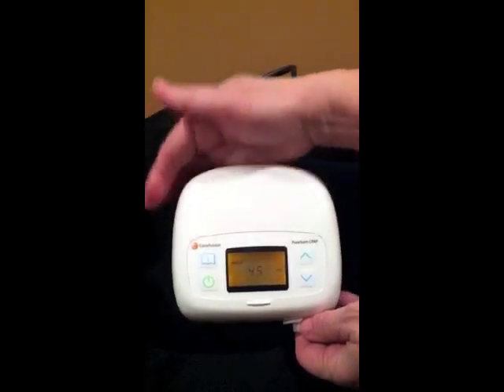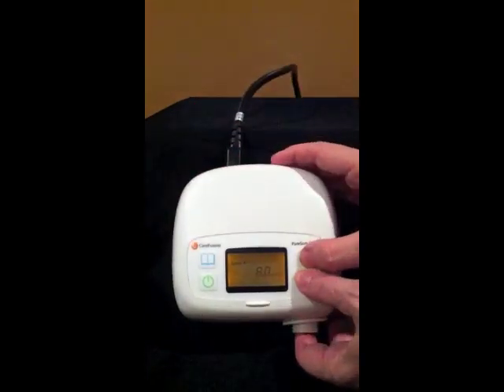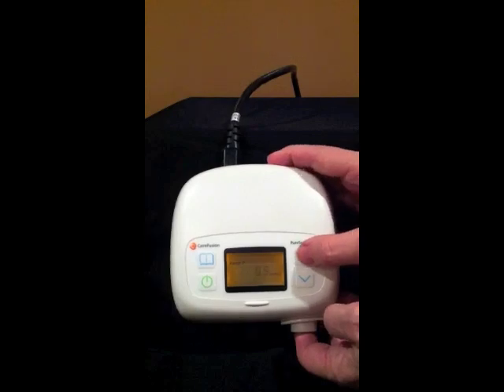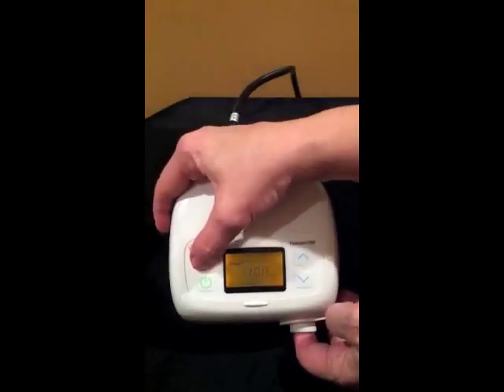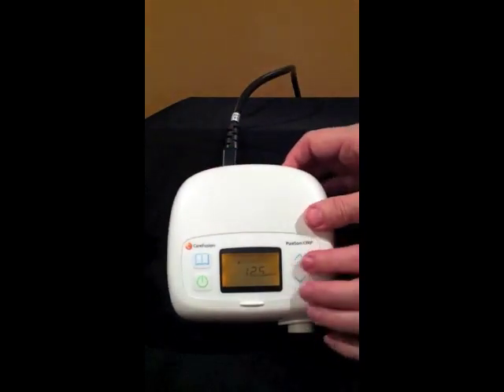Hitting that menu button one more time and locking that in, hit it a second time and you'll be allowed into the setting while depressing these two buttons for the ramp starting pressure. Lock that in, hit that one more time, and now you're in the therapeutic pressure.